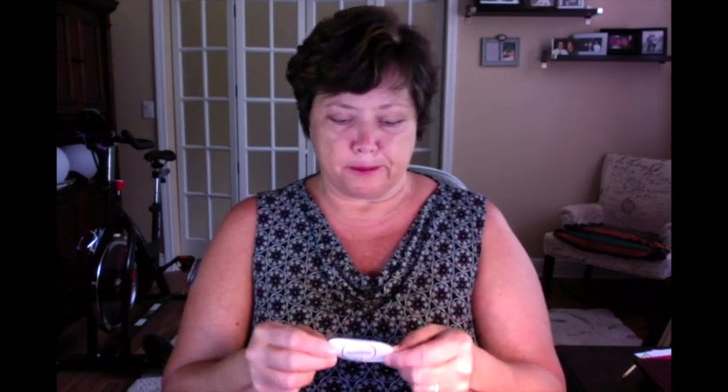Hey everyone, summer's here and we're all swimming or enjoying activities outside, so it's about time that I got to do this remake for the Eversense tape — a solution to how you can reuse it by cutting the flaps off. I've been meaning to do this video for a while. This is the transmitter regarding Eversense; you see I have no flaps. This is going to be a quick tutorial on how you can reuse this tape.